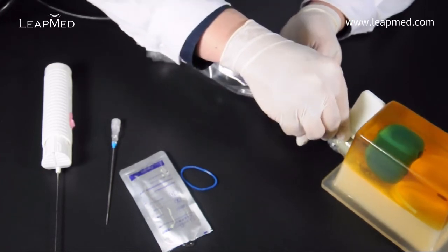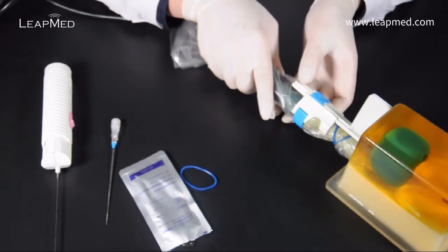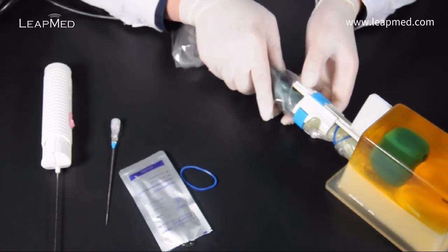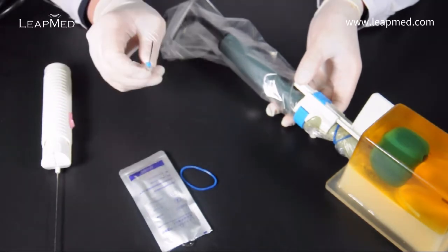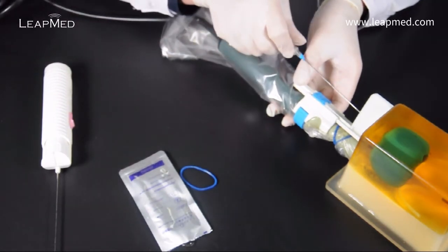The height indicator in the needle adapter is the same as indicated on the ultrasound system. Insert the coaxial introducer needle through whichever hole on the Surefire Bracket you need to use.